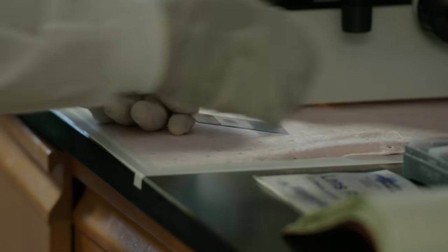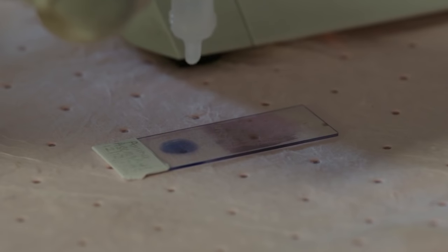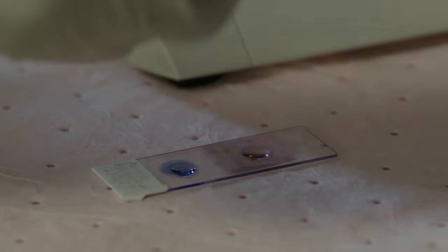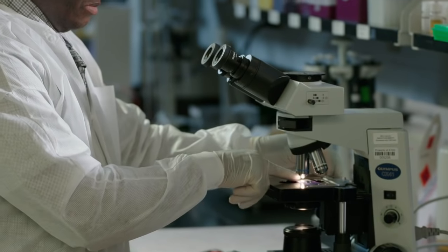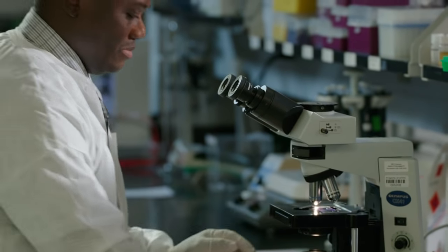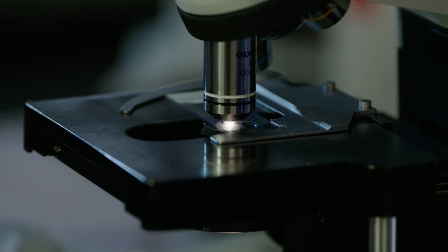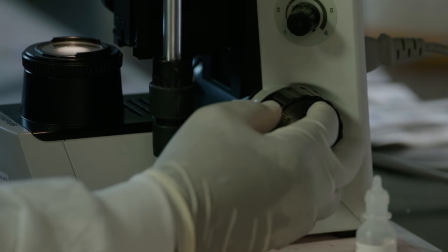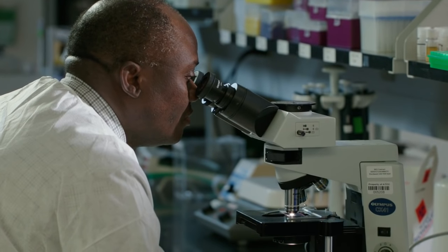After cleaning the lens system, you get your slide, you place a drop of oil immersion on the thick film as well as the thin film. And then you place it on the stage, put the oil immersion lens in place, and then focus initially where the oil touches the 100x objective. From there, you start looking out for the malaria parasites.